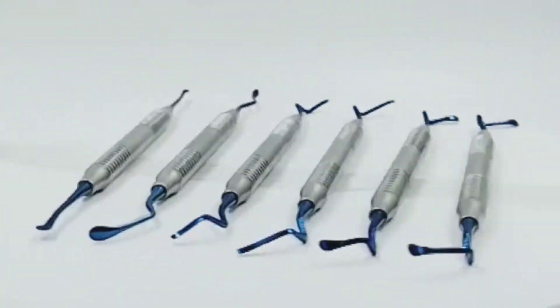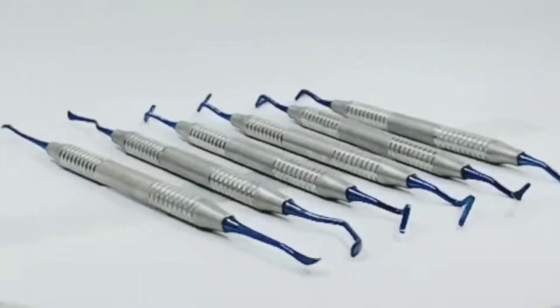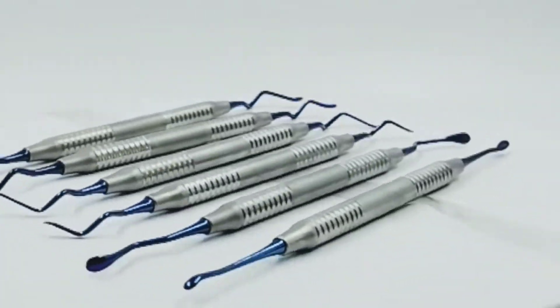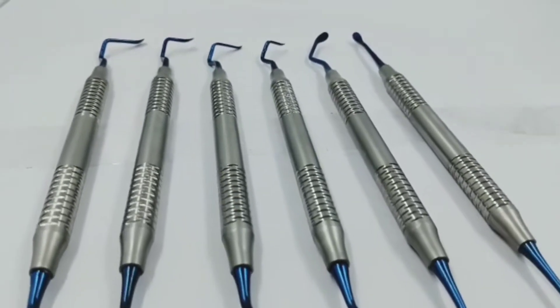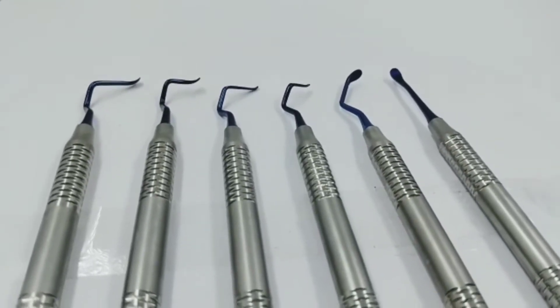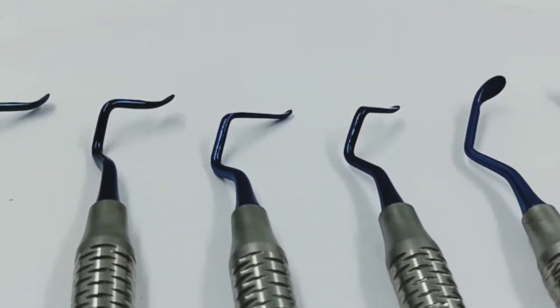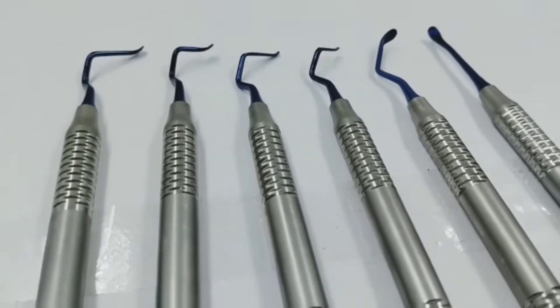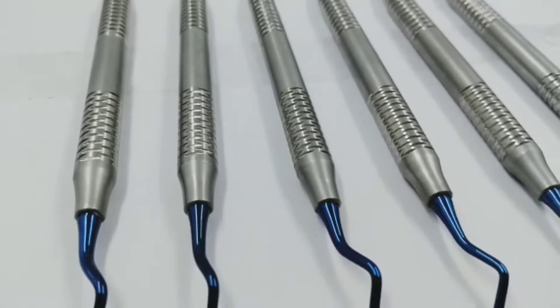Vista Tunneling Kit stands for Vestibular Incision Subperiosteel Tunneling Access Kit. The Vista tunneling kit is useful for repositioning the gum margins in the mandibular or maxillary arch. It enables the minimally invasive treatment of maxillary anterior gingival recession defects by vestibular incision subperiosteel tunnel access.